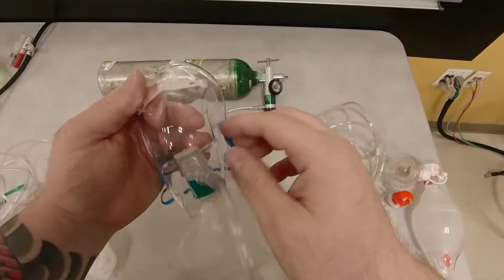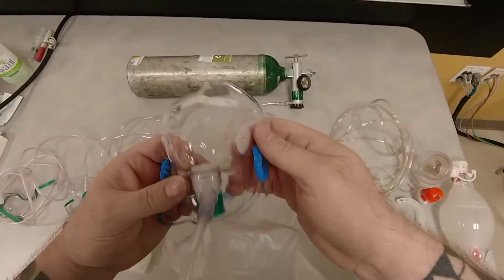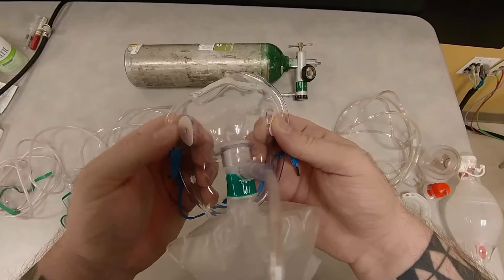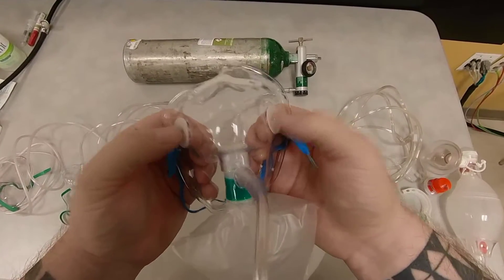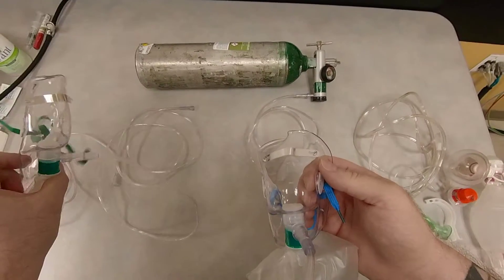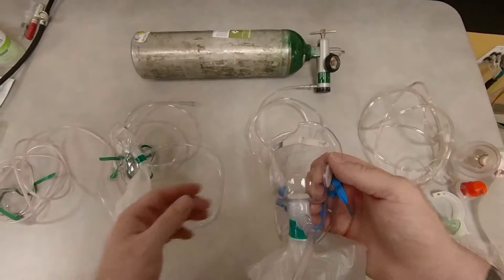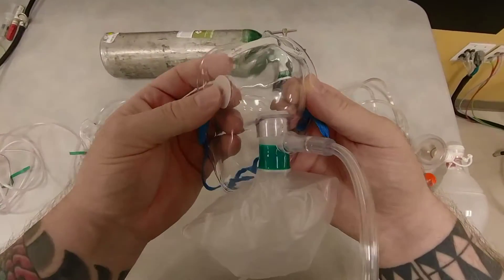So now the possibility of patient suffocating if you don't notice that your oxygen has run out is high. Because these will close, and no room oxygen will go in. That's why they start making these devices as a safety feature. But they are not giving you full oxygen. So this will give you as much oxygen as possible.